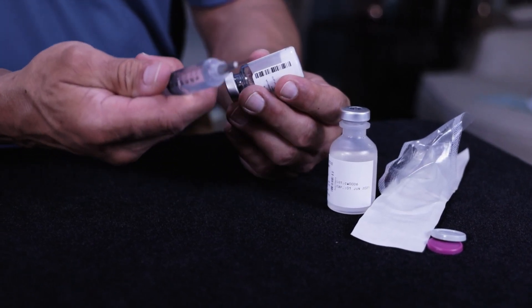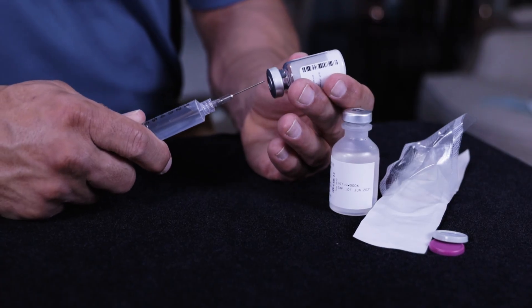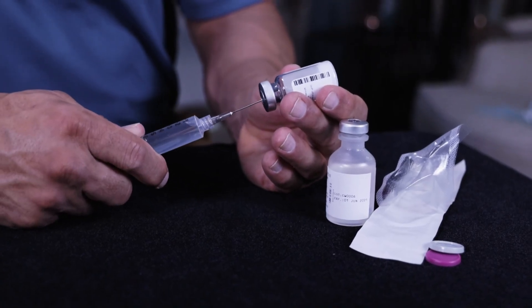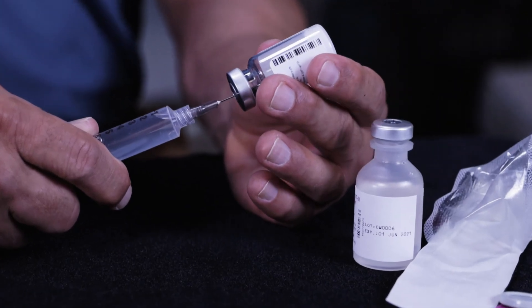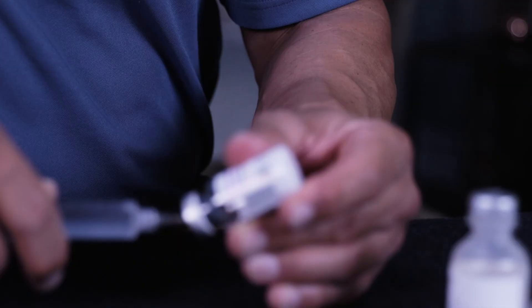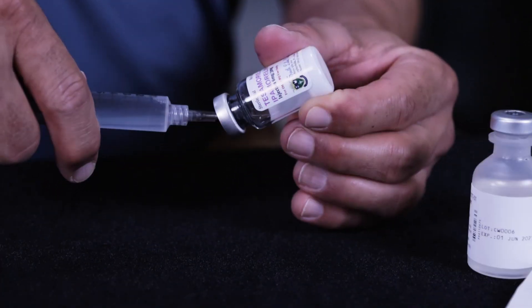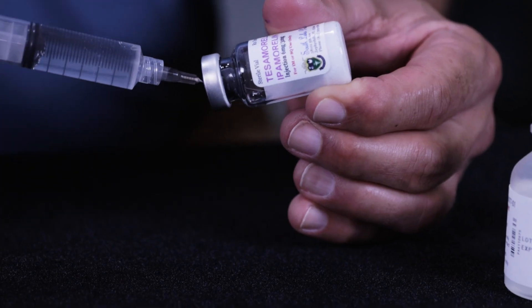What you can do is hold the plunger with your fingers and do not allow it to go in freely — you need to control the flow of water going into the vial. Go ahead and insert it; you'll feel the plunger wanting to move. Tilt the needle down to the glass against the vial and then slowly allow the water to release into the vial.